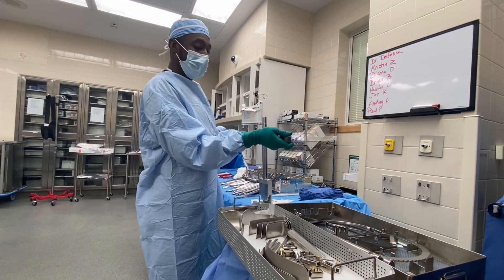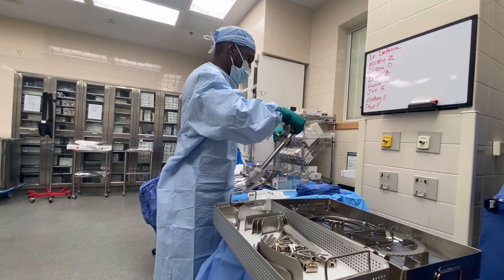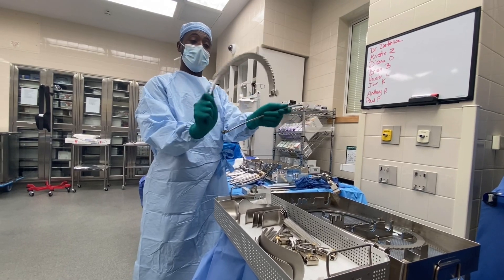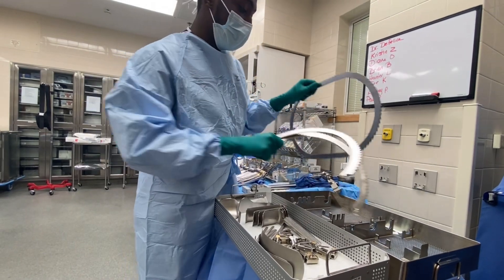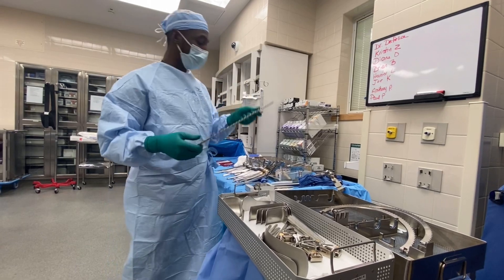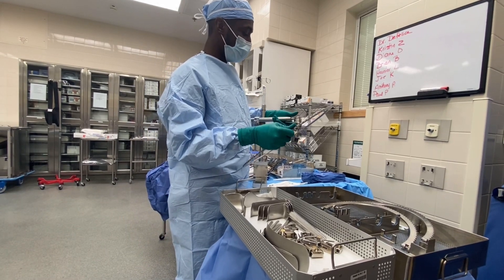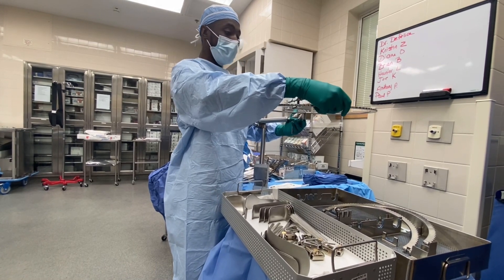This portion will be above the patient's abdomen. The next piece you give them is the ring — you ask your doctor if they like the ring with a little more mobility or if they want the static one. Most people usually use the static one, positioned above the patient's abdomen.